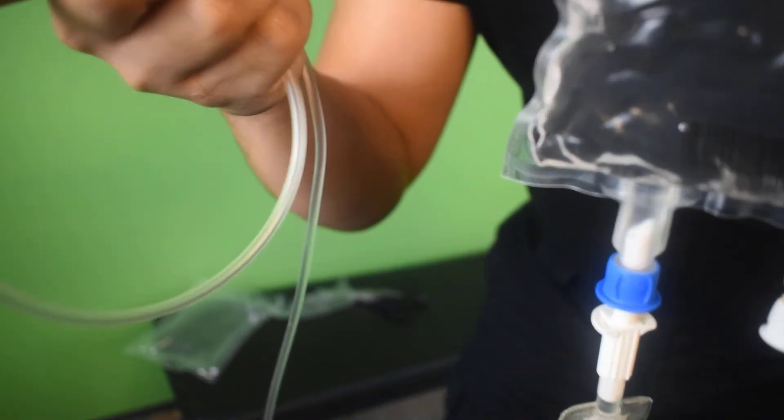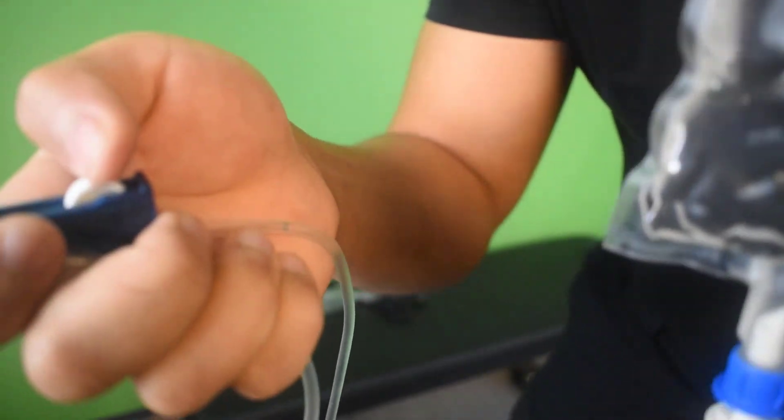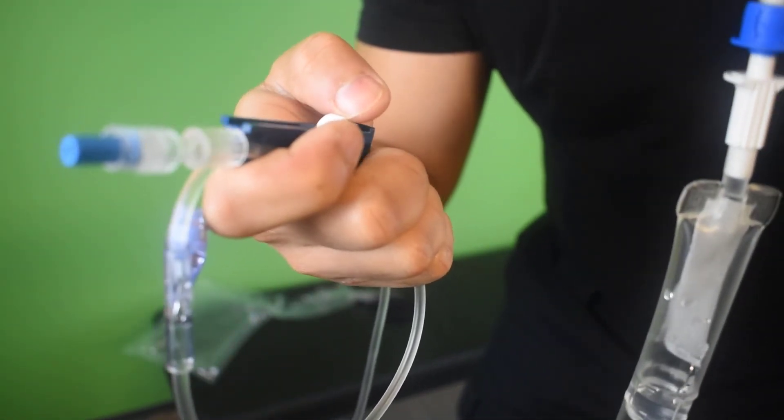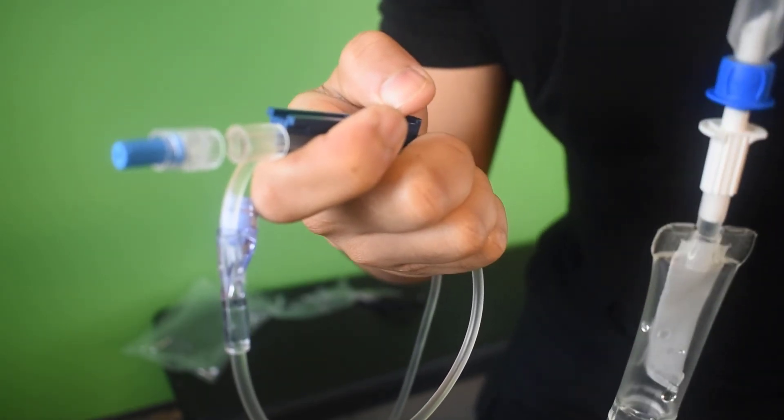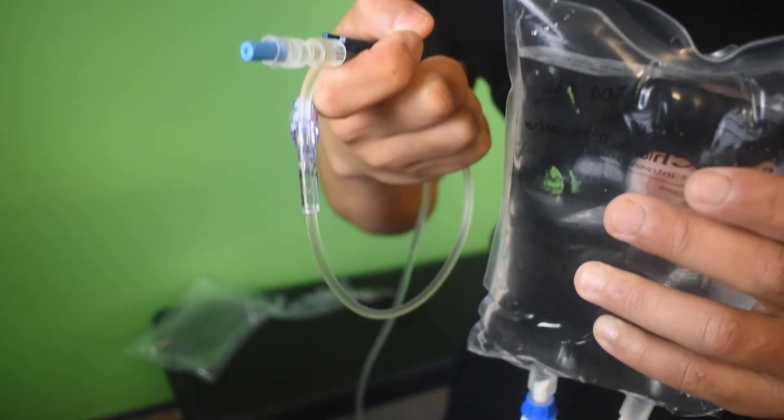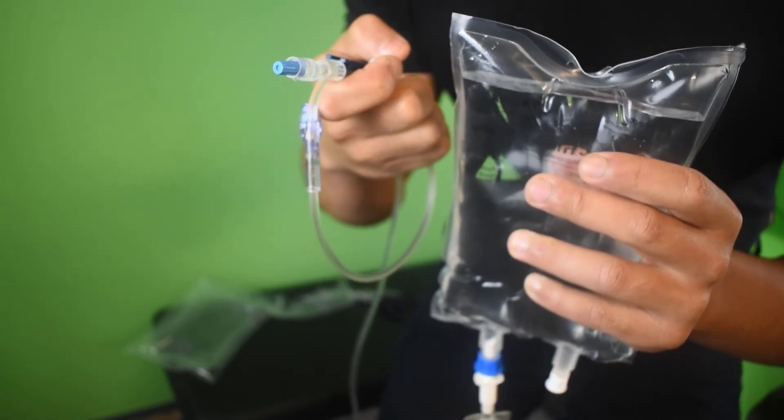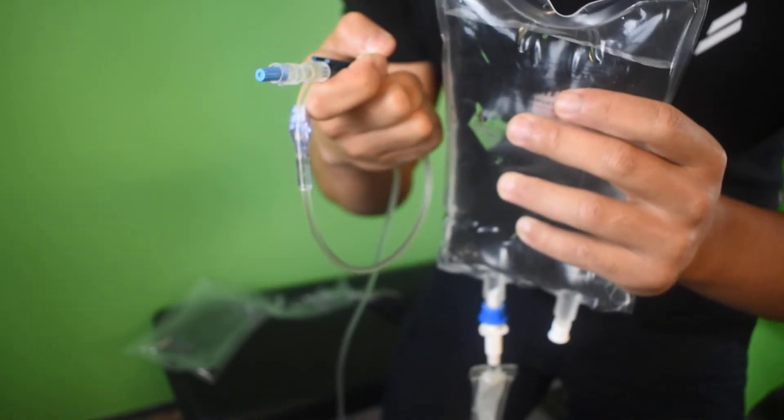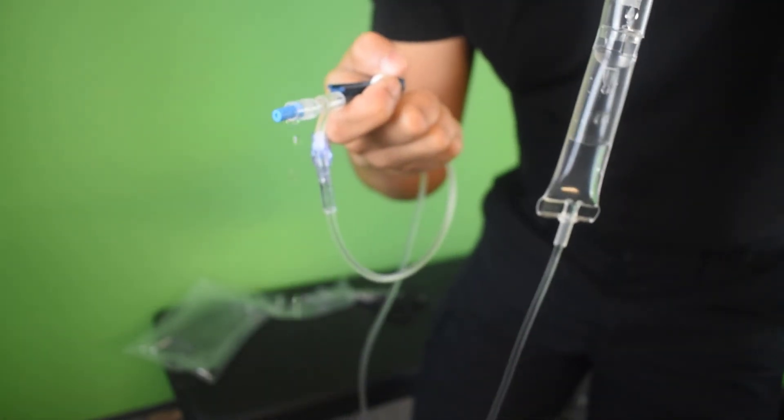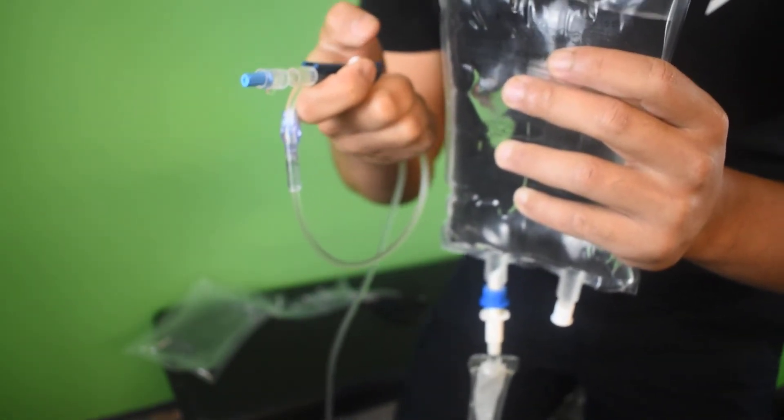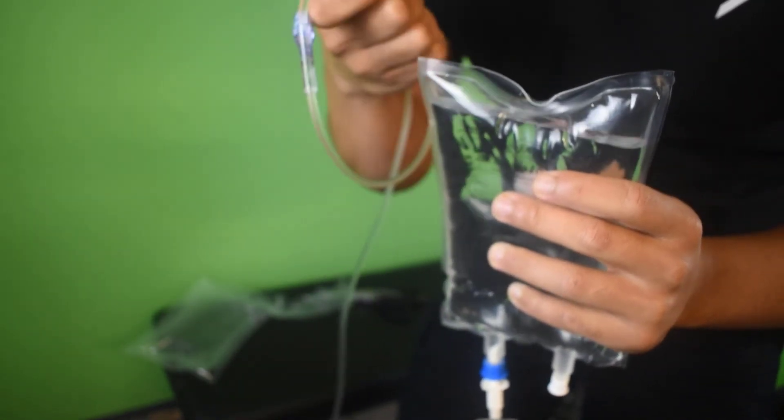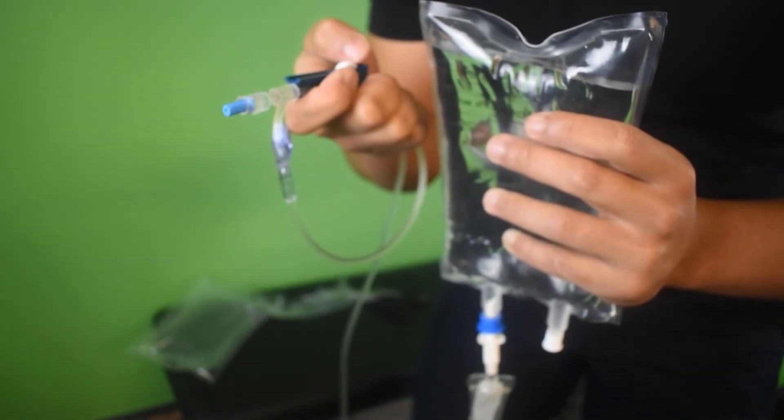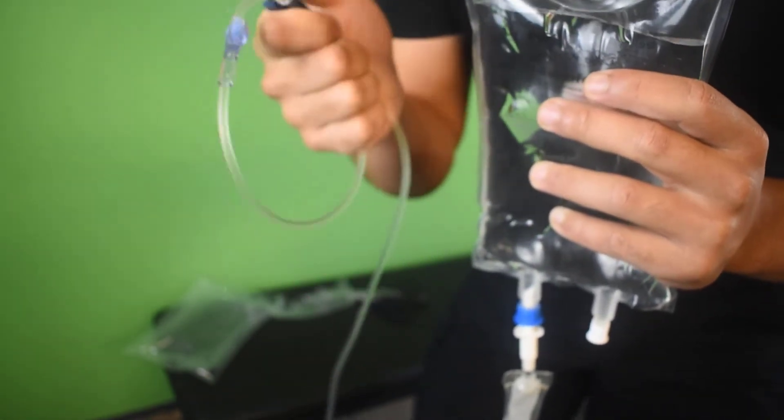All the way to the top. And I'm just watching. And as you can see, if you can see the fluids, I'm going to raise it. Now it's almost to the top. I'm going to raise it up. Now look here. See this? There we go. Now watch this. That was leaking. Now if I lift it up a bit more, it's leaking again. So it's all relying on gravity to work. So I do that one more time. Now it's going. Now it's stopped. So you don't need to put this in a plastic bag. You just need to keep this above the fluids and it will never drip. Now that I'm happy it's fully primed, I'm going to lock it up. And now that's good to go for the patient.